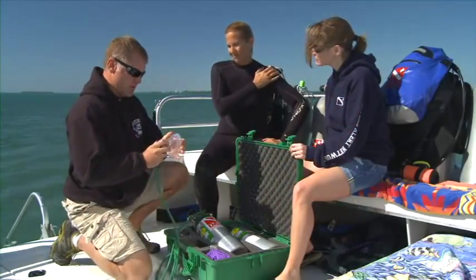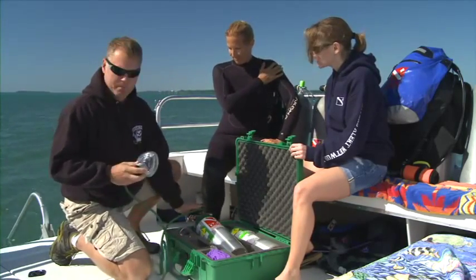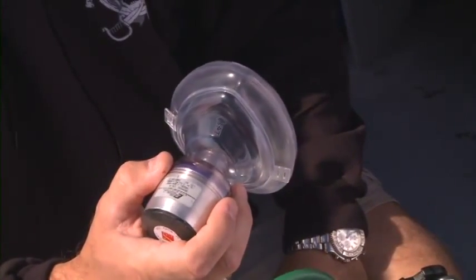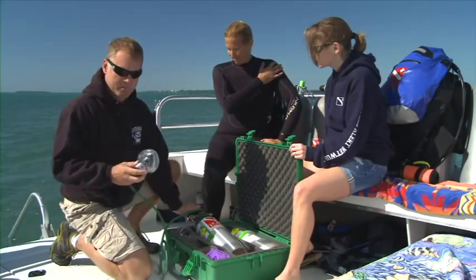When activating the system, avoid looking at the pressure gauge. The demand inhalator valve is the first choice any time there's a breathing injured diver. Be sure the system is not leaking and then take a breath from the demand inhalator valve.